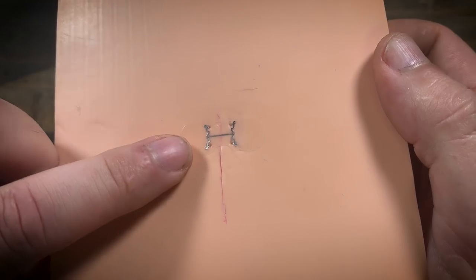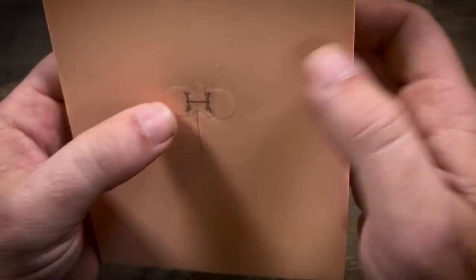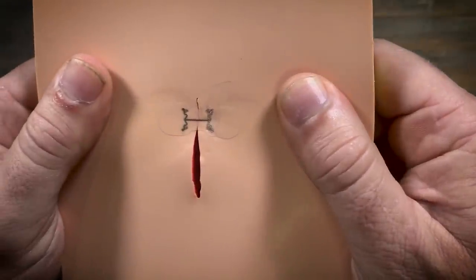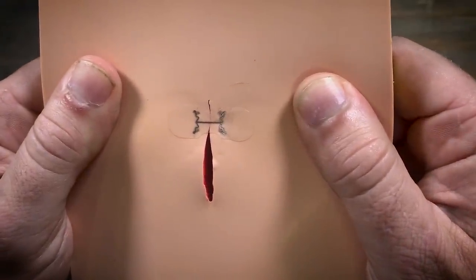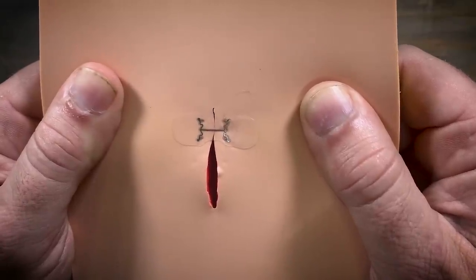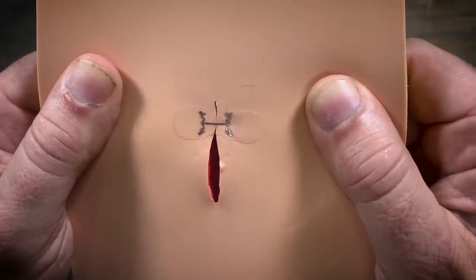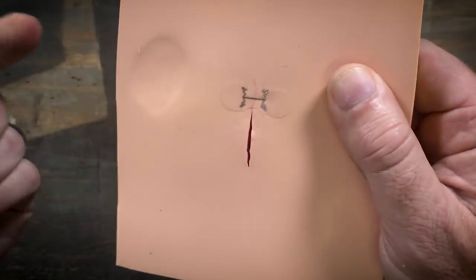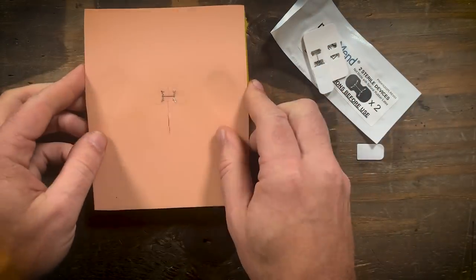And you can see the staples are in which is going to help you keep it tight. So as you can see as I pull this I'm pulling pretty hard. Hopefully you don't pull that hard on your skin. You can see it kind of separating a little bit up at the top but it holds it together. So we'll put one more on there.